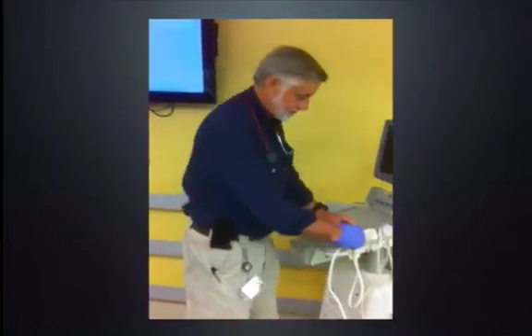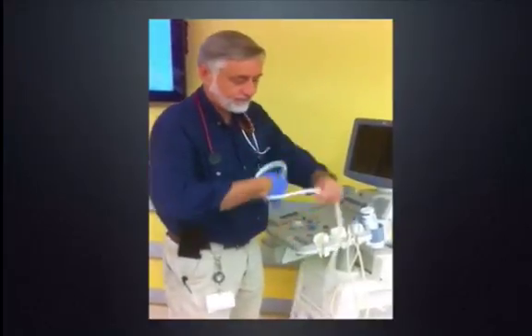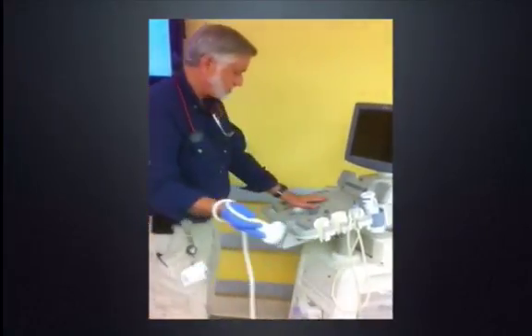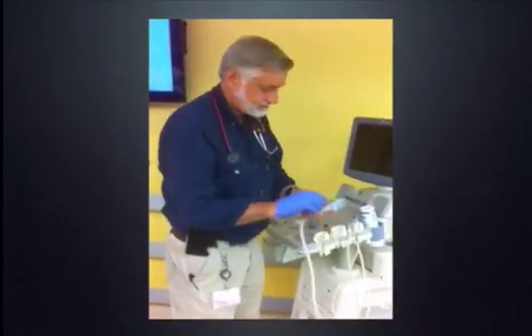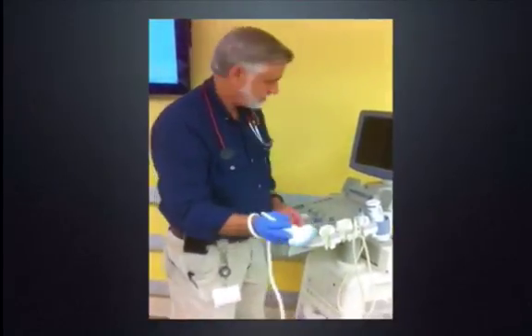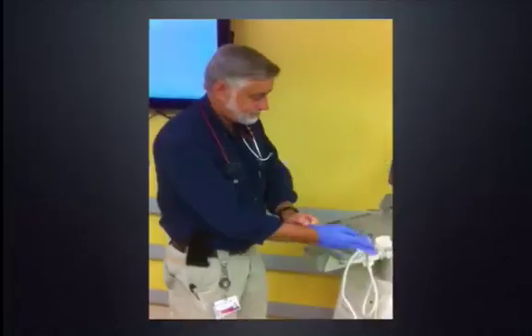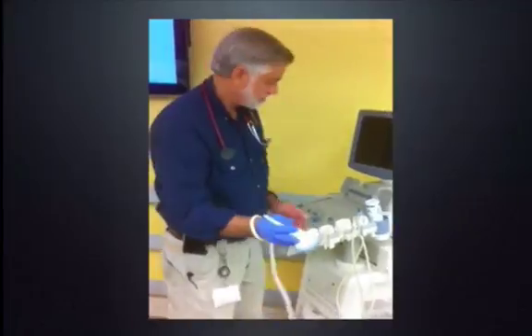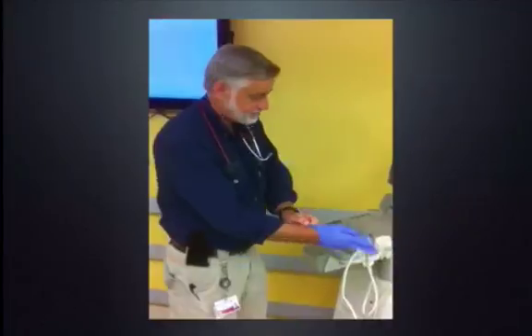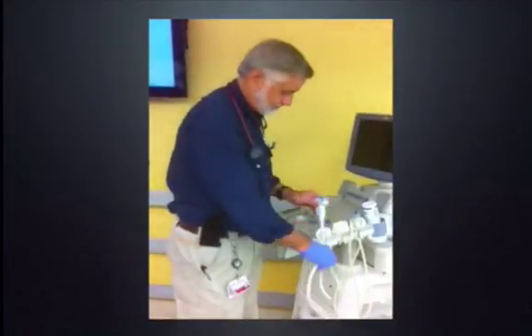While I know this is controversial from a universal precautions perspective, I sometimes recommend gloving your right hand and wrapping the probe around it, using that hand for touching the patient and leaving the left hand un-gloved so that you can touch the machine. That way we can keep ourselves from cross-contaminating the machine with the patient's blood and body fluids.